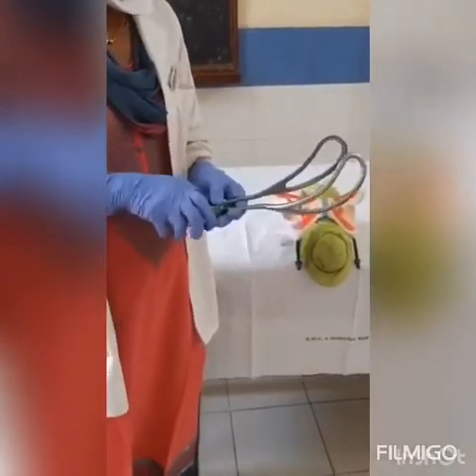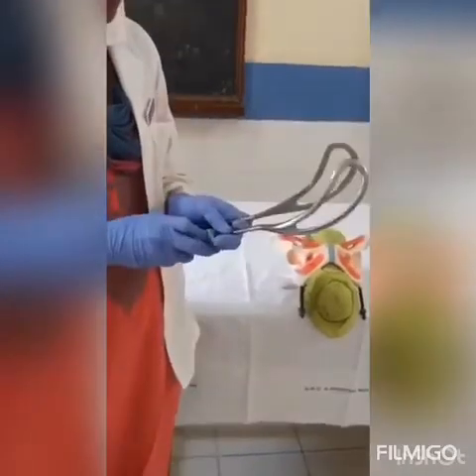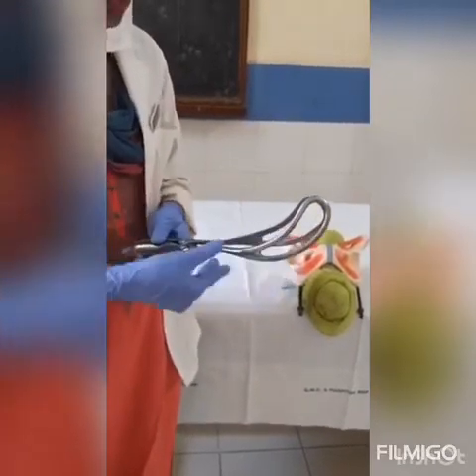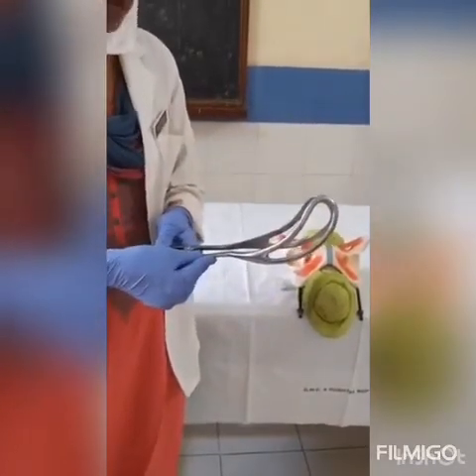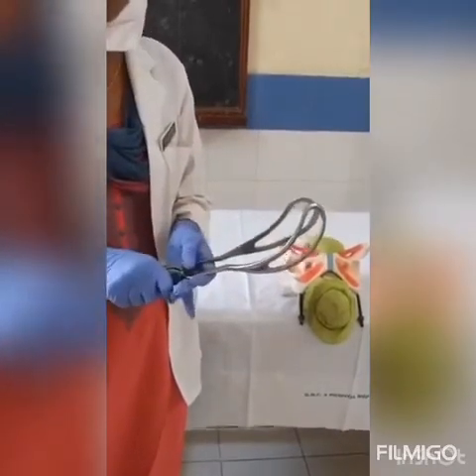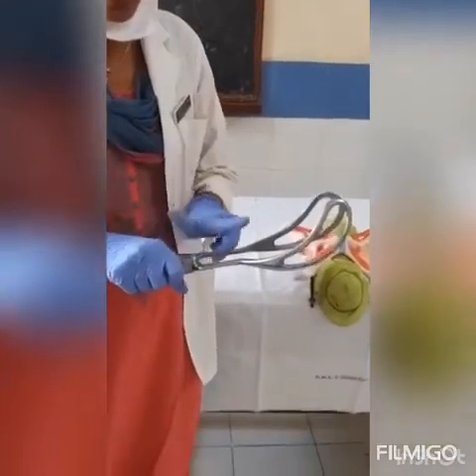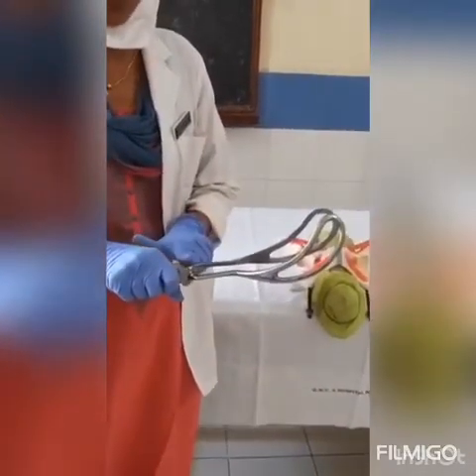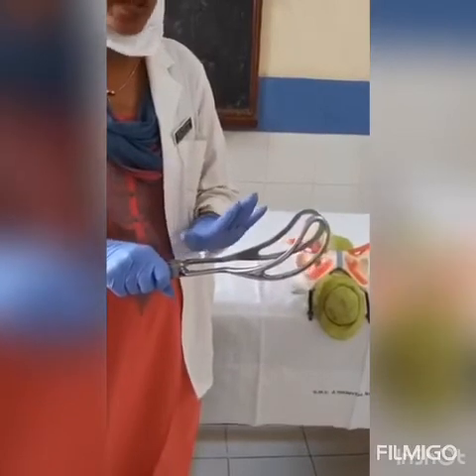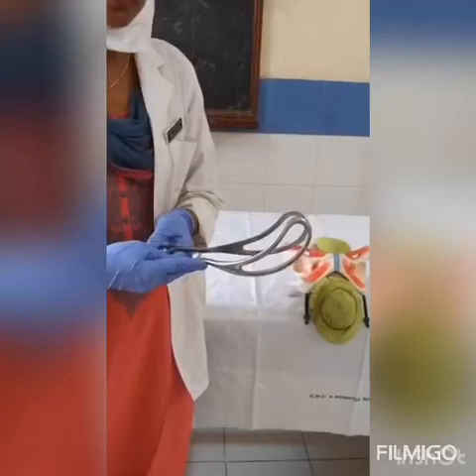The forceps snugly fits onto the fetal head. The shanks provide the length to the forceps, and these are the handles for gripping. Wrigley's forceps consist of English locks. There are various other types of locks also, like sliding locks and French locks.